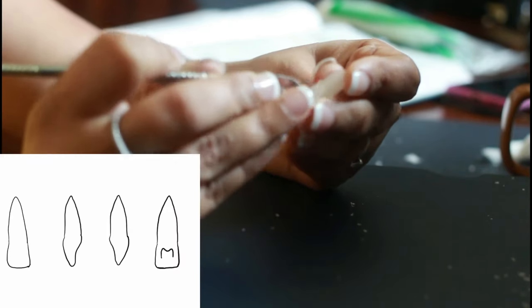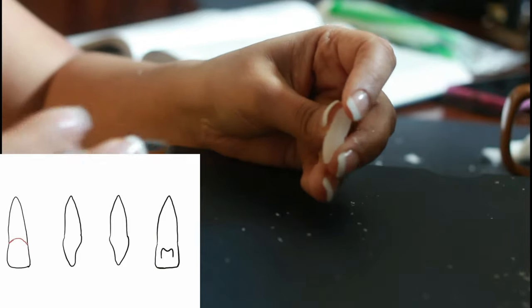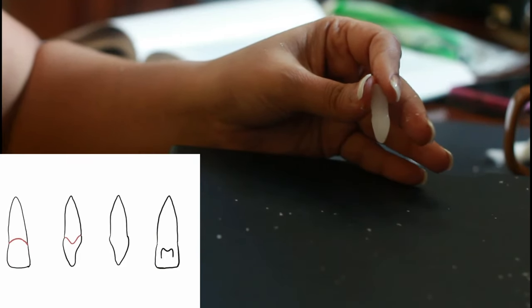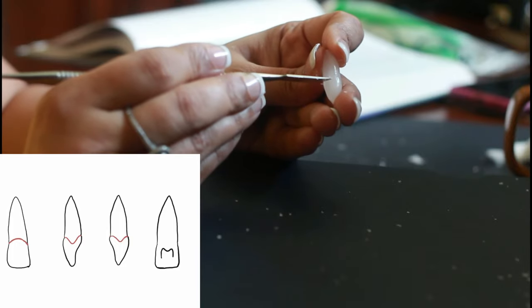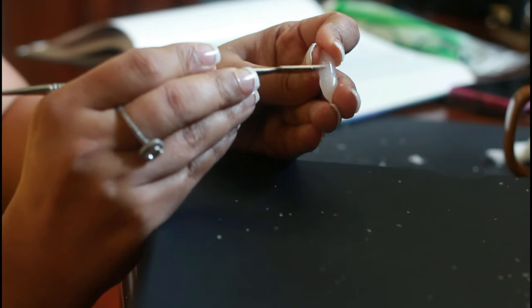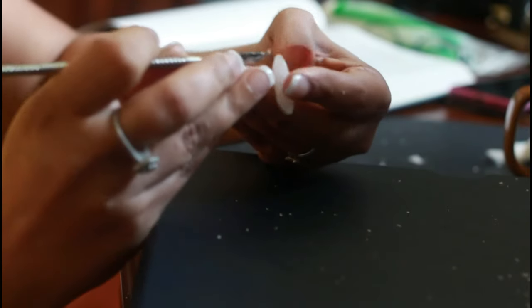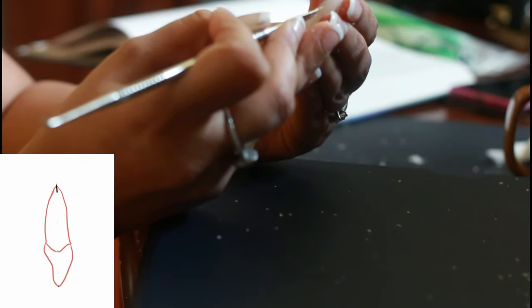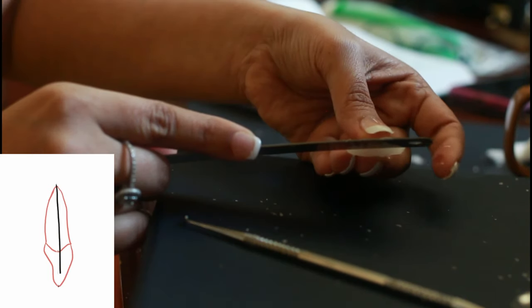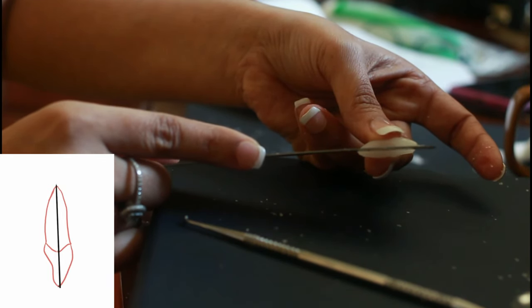One of the last things is to mark the crown outline and then shape the wax below and above the outline all around — this will give a very finished look. The last thing is to verify that we've stayed at the center of the midline: the incisal edge and the root end should be in the same line.